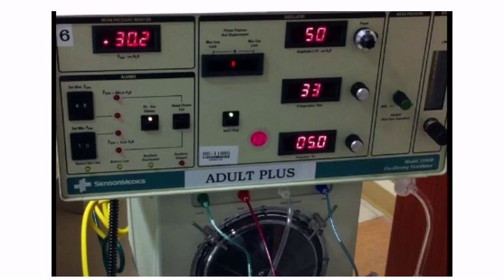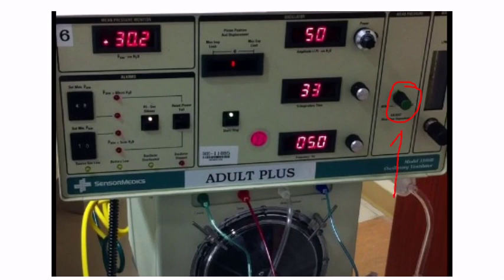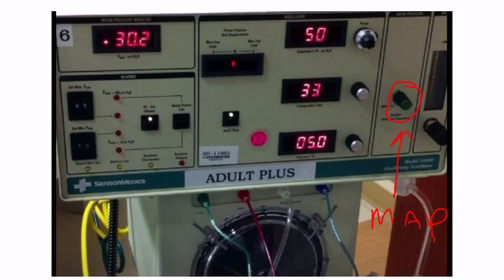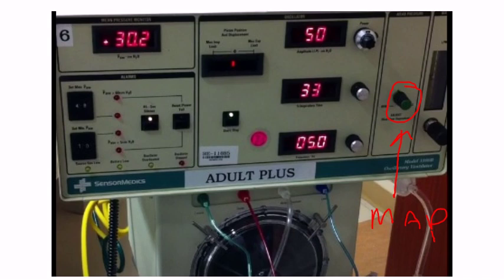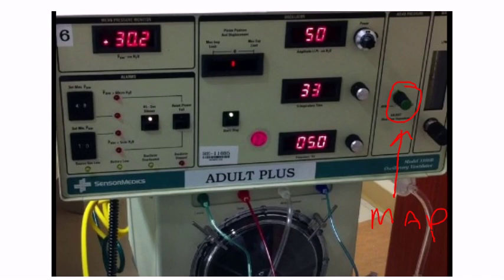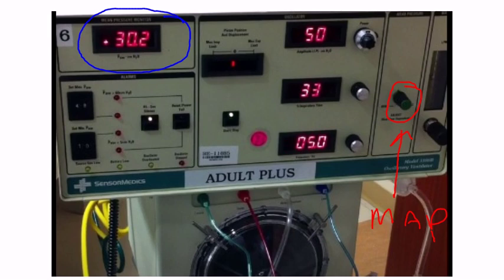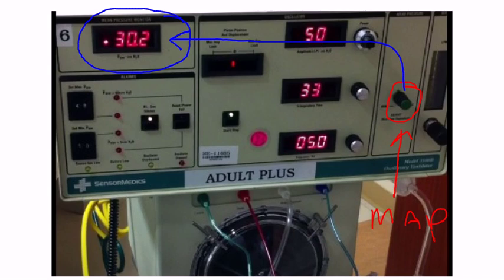Moving on, I have another knob here, and this is what's known as my mean airway pressure adjustment. This is how I adjust the mean, or the average, pressure encountered in the airways. I can actually monitor that mean airway pressure — if you look over here on the left, there's a little gauge showing 30.2, which is the mean airway pressure. I use this knob to change that value.